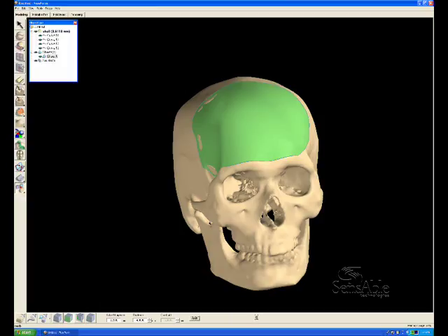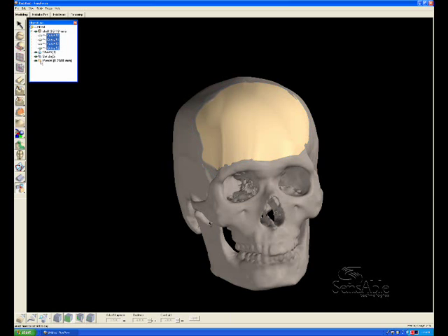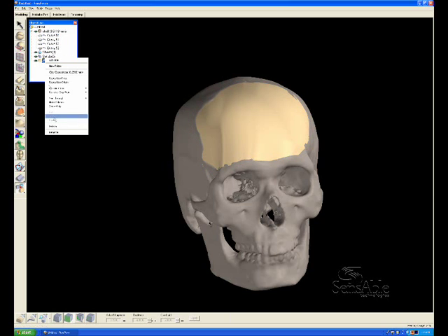Before we thicken it, the NURB surface has no thickness. It's described only by the boundaries as well as the cross section curves. We need it to be thickened into virtual clay so that we can tug and push and pull on the patch to make sure the geometry is perfect with the defect area.